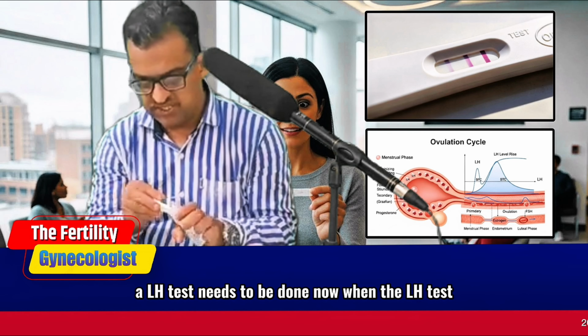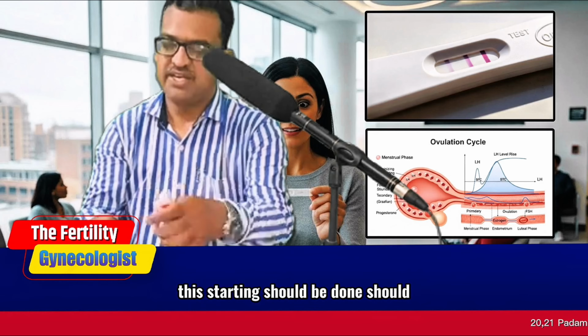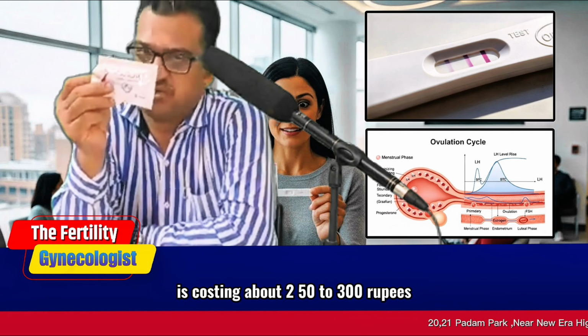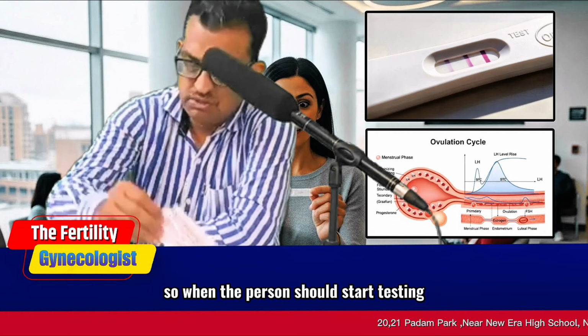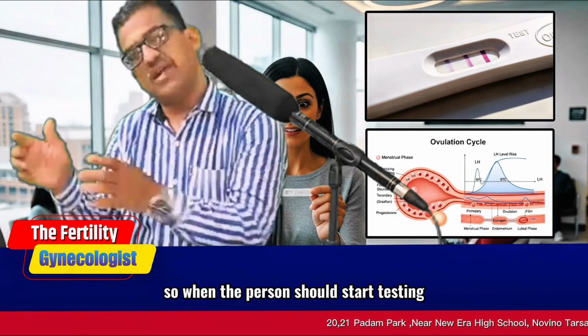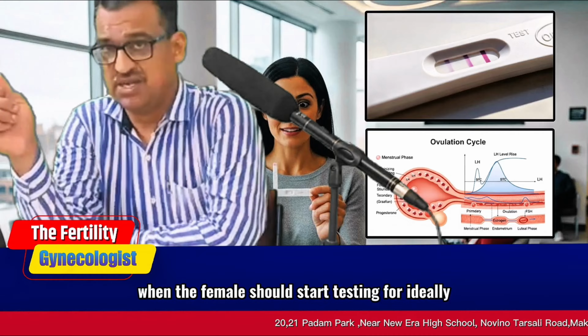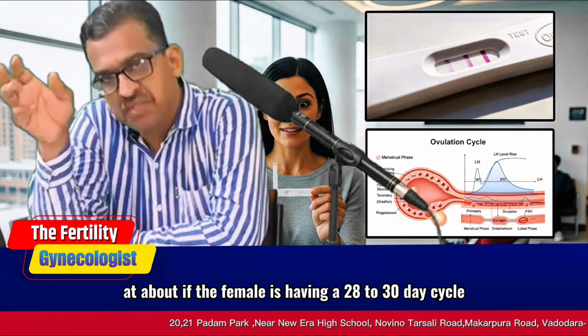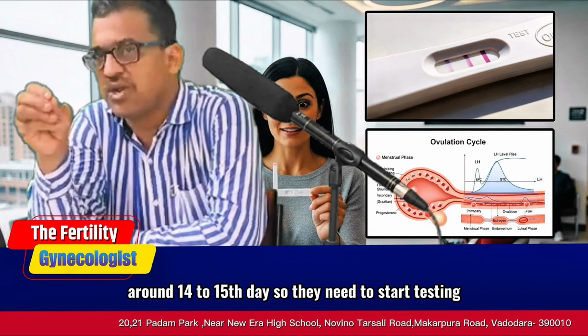Now, when should the LH testing be started? First of all, let me discuss the cost. This is a costly kit. One kit costs about 250 to 300 rupees. So when should the female start testing for LH kit? Ideally, if the female is having a 28 to 30 day cycle, that means ovulation would be somewhere around the 14th to 15th day.